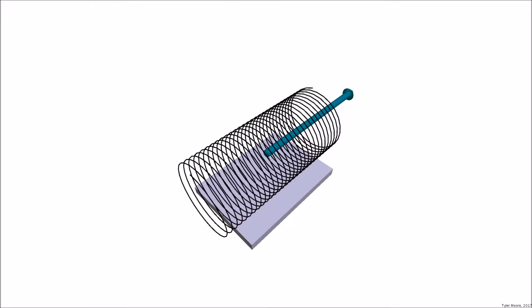First is the primary magnet. This is the large superconducting magnet that generates a very strong magnetic field along the z-axis.